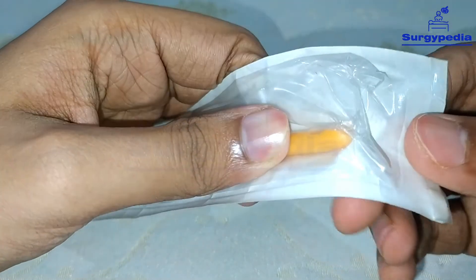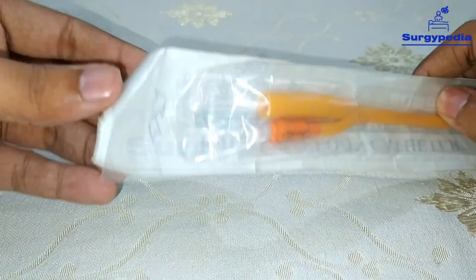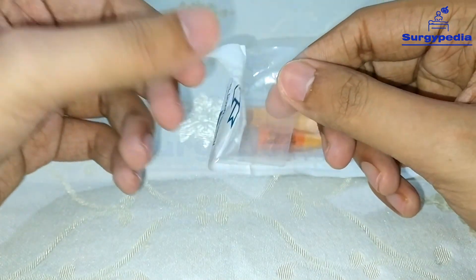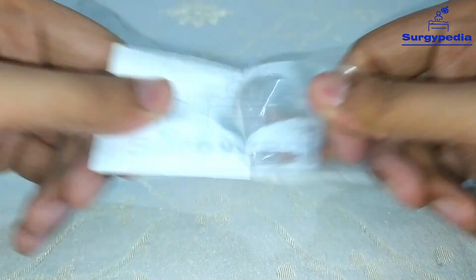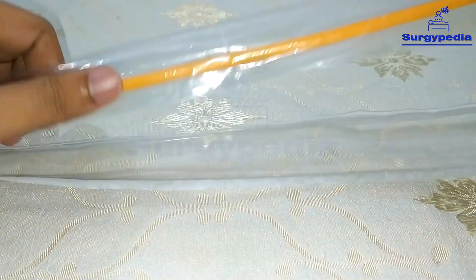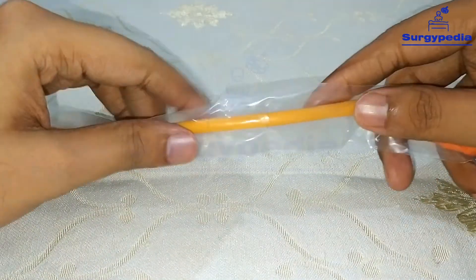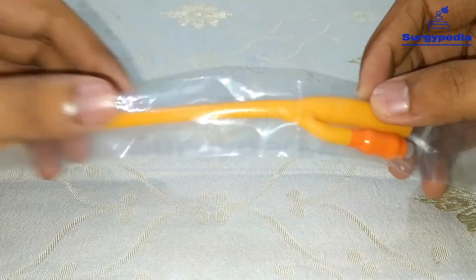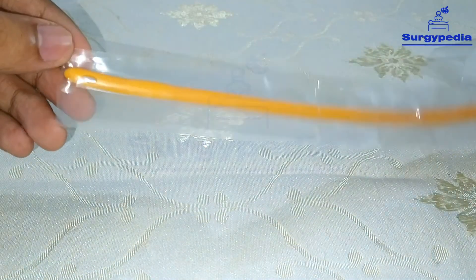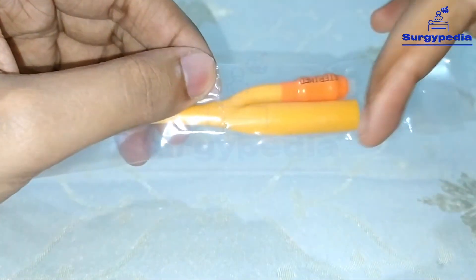At the tip, as with the simple rubber catheter, there is no opening at the front — the opening is only on the side, for urine to flow through. Let's open this Foley's catheter for a closer look. This is the sterile pack and we peel it off. We have opened the outer packaging, and the Foley's comes in another sterile inner packaging. There is a part to tear off to take the catheter out — you can remove it from the tip end or from the terminal end.